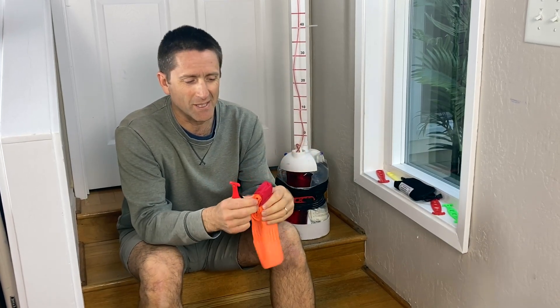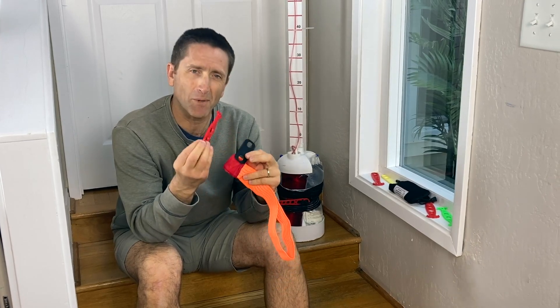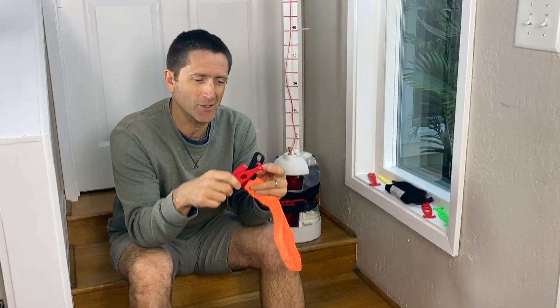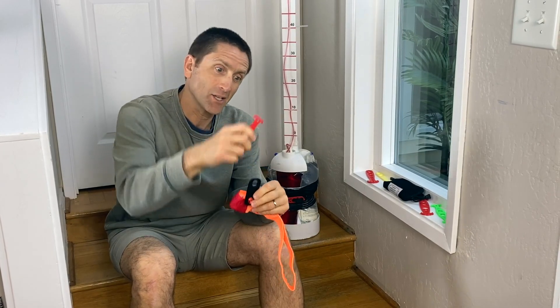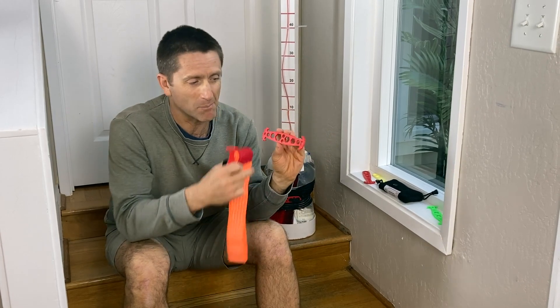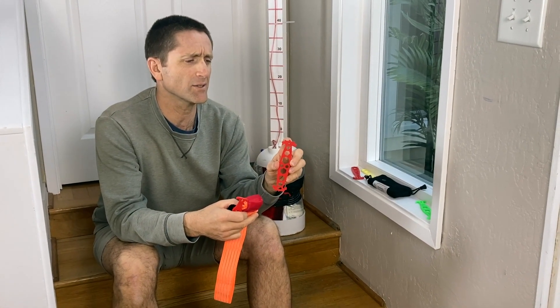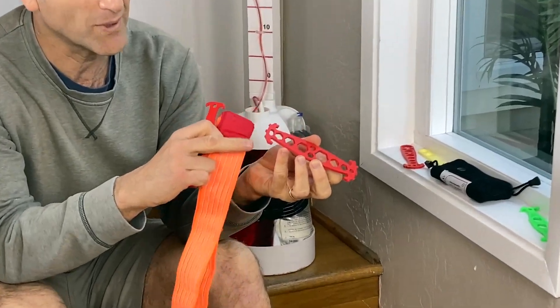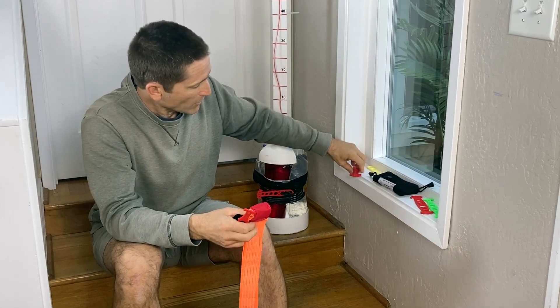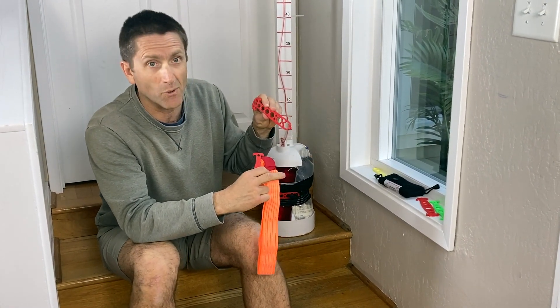I'm going to take these parts. I've spent a lot of time 3D printing multiple different windlass designs. This is one of them. It has an oxygen key on this side, a hex key on that side, and a crack-open tool up here. I have made this a multi-nut closed end wrench. It has Allen key, Phillips head, flat head, Torx — lots of different things you could do with these. I can also set the pivot point off so that you have a little bit more leverage.